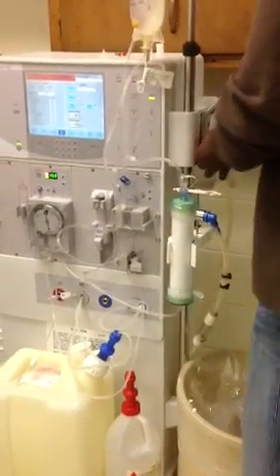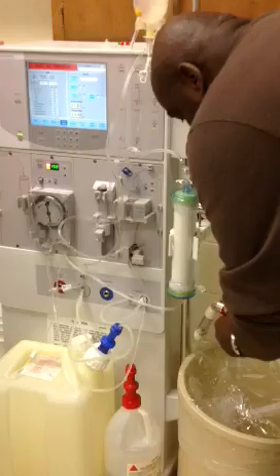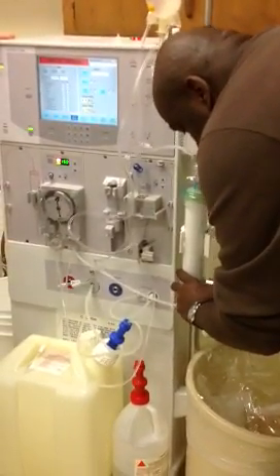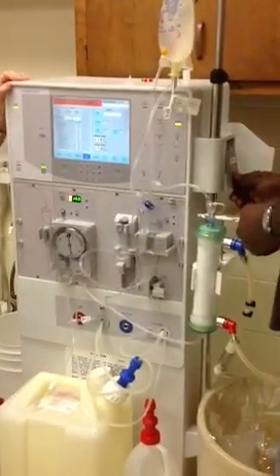And we always save those two side caps. Slide the silver part back, slide it back again, and forward. Close your door down gently because there's a mechanism in there that can break.